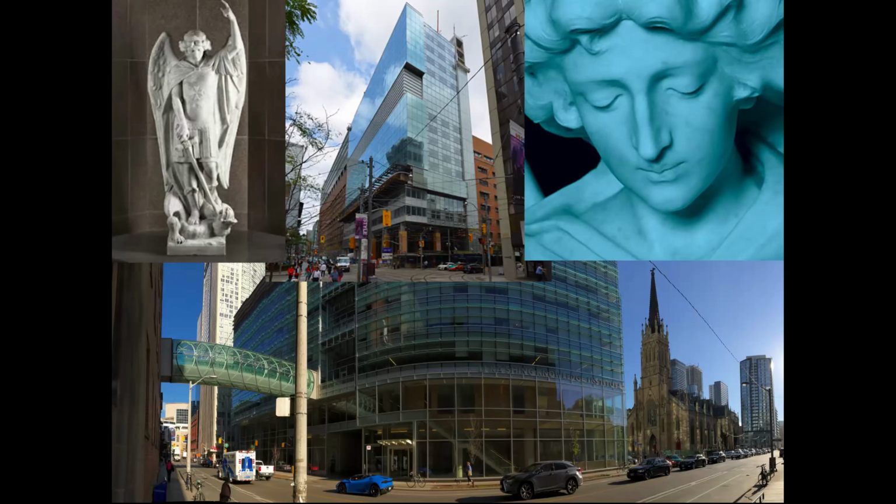At St. Michael's Hospital, we've been doing cardiac tissue mapping with T1, ECV, and T2 since May 2017. We have a large pool of technologists with varying teachability and skill level who are under constant time pressure, and a small physician team, therefore most scans are not MD supervised. Cardiac imaging takes up just 3% of magnet time. We have 4 magnets, 2 Philips Achievas and 2 Siemens Vidas, and we have tissue mapping on all magnets.